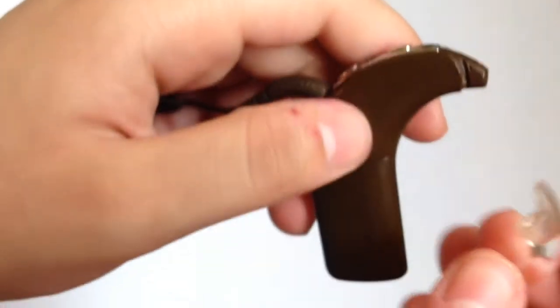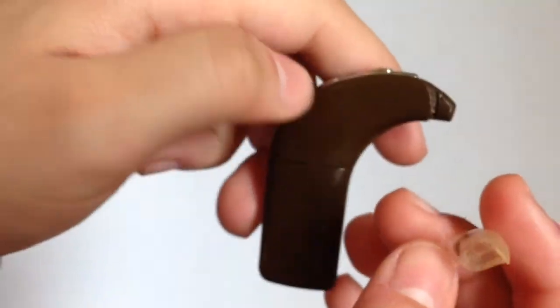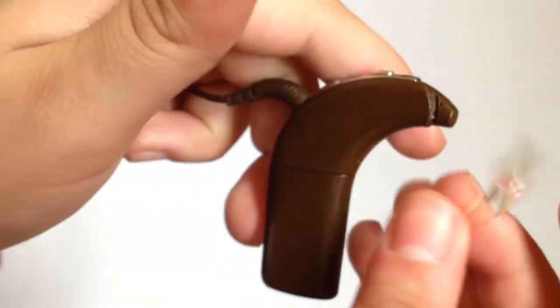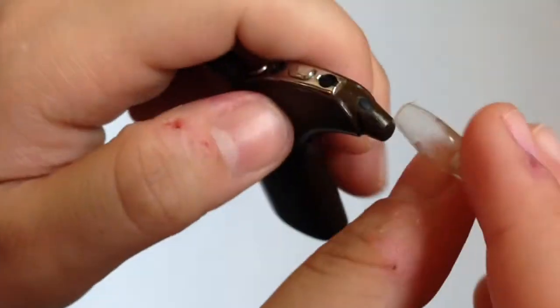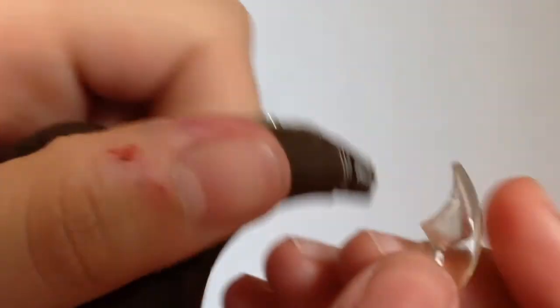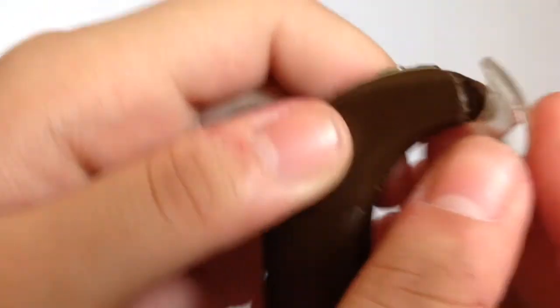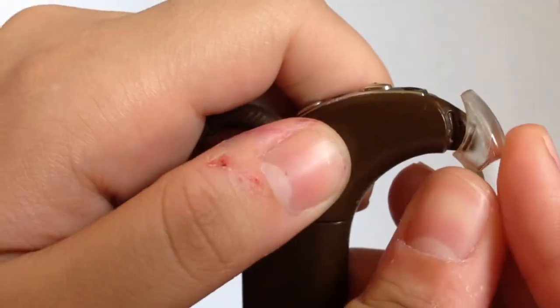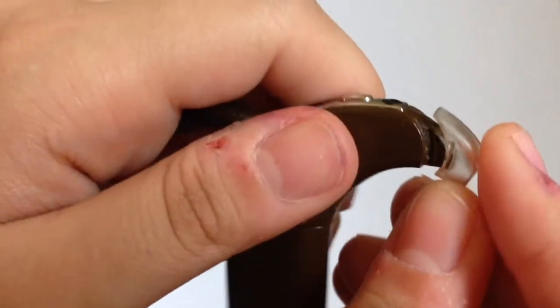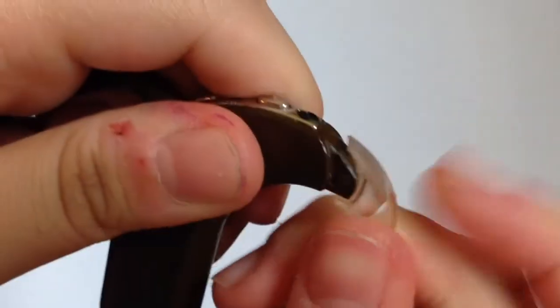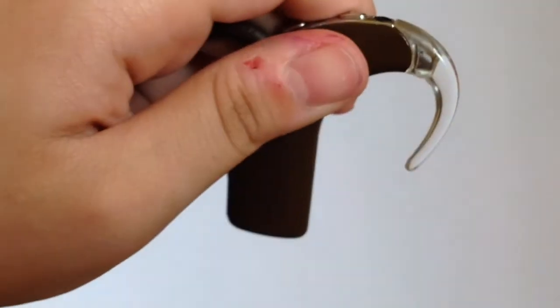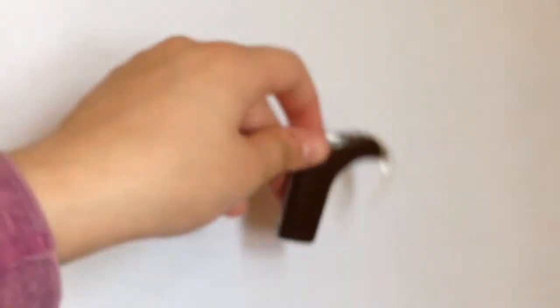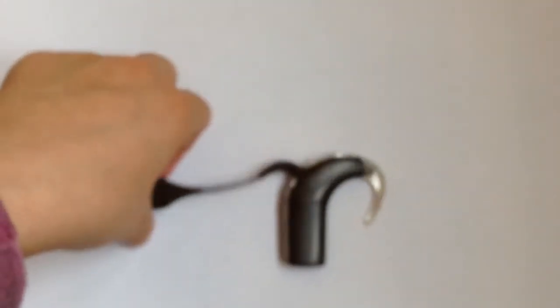Anyway, I'm going to show you guys how to put it on one more time. And then hopefully, unless I change my mind, I will not have to show you guys again. And I hope this video helped you. I'm just going to put it on now. Align it. It's aligned. Now just snap it on. Just look at that. It's going to take a few tries, especially if you've never done this before.